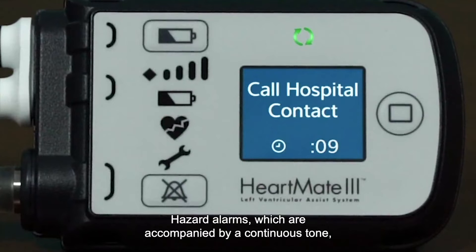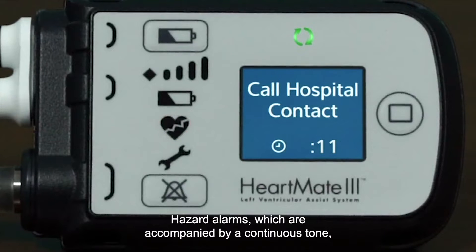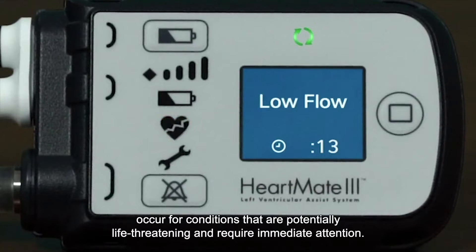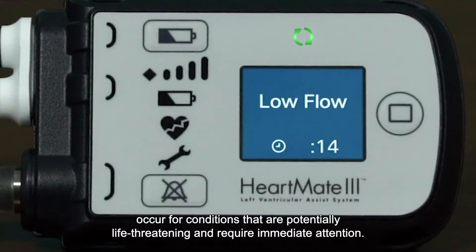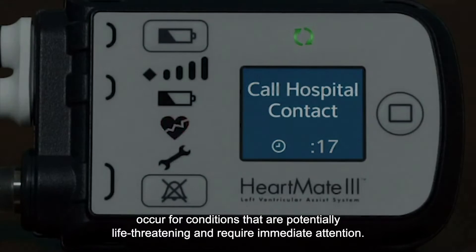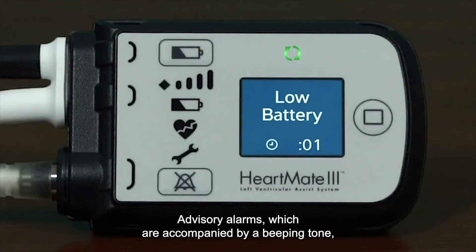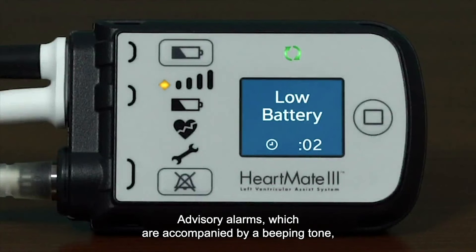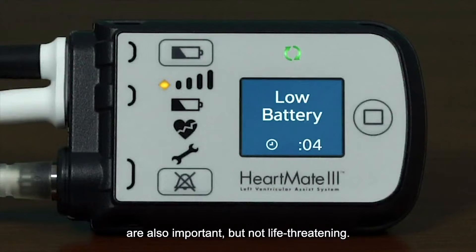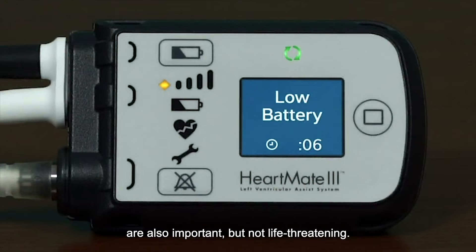Hazard alarms, which are accompanied by a continuous tone, occur for conditions that are potentially life-threatening and require immediate attention. Advisory alarms, which are accompanied by a beeping tone, are also important but not life-threatening.